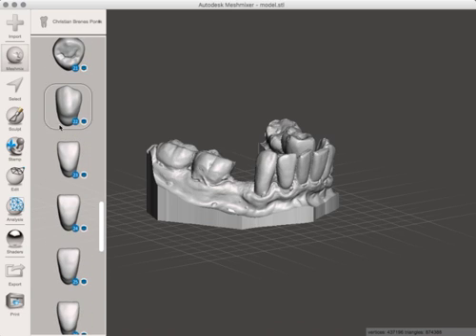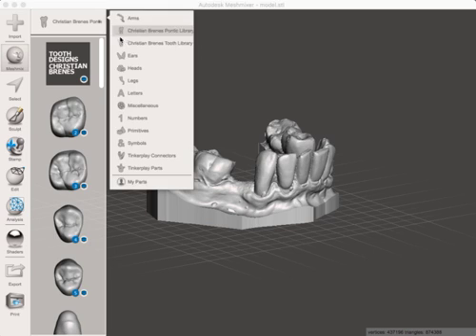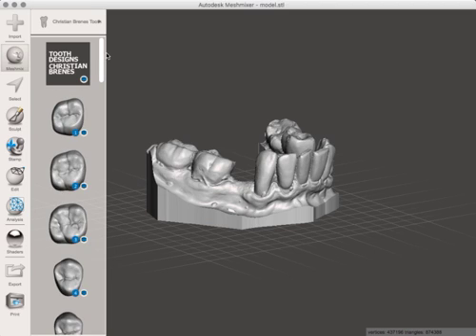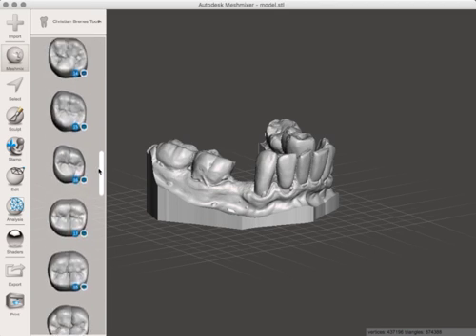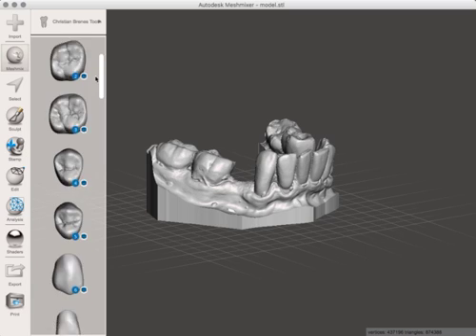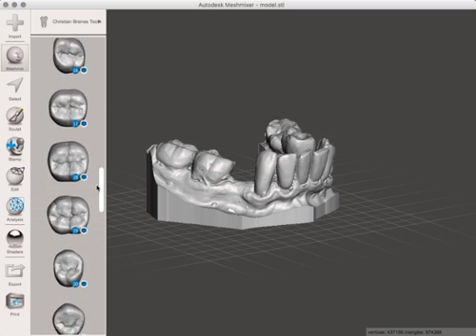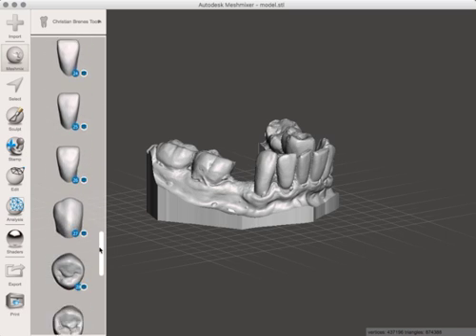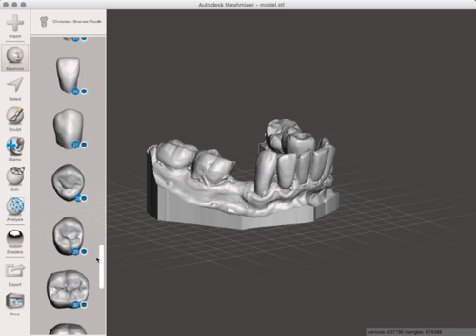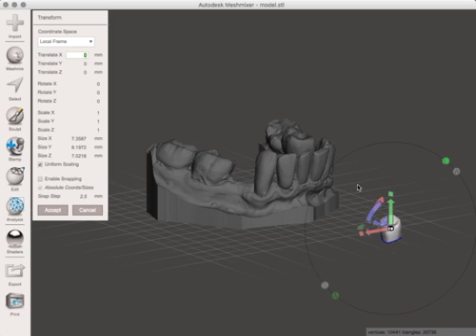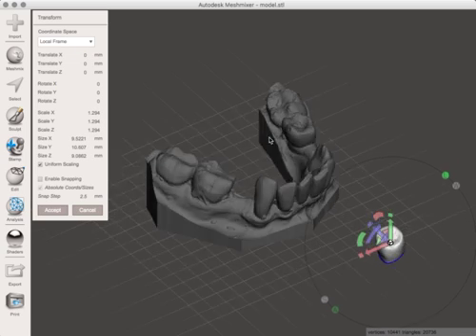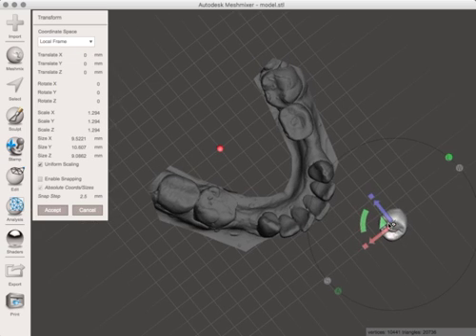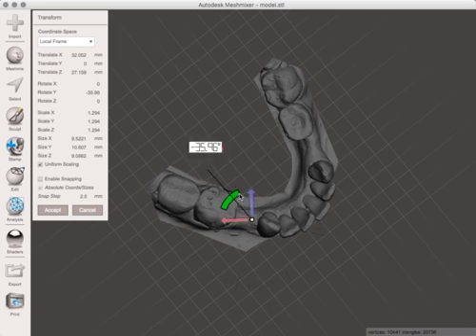You can kind of see the rounded ovate Pontic on these, or you've got the teeth here which don't have that ovate portion to them. So you come down to where it says Tooth 28, and once you've got this tooth, obviously you're going to need to make it a little bit larger. Bring it over to the right area.